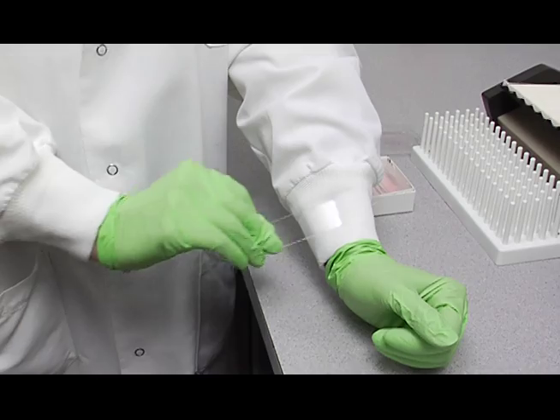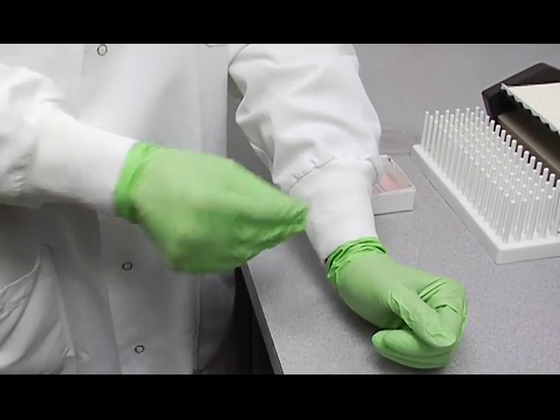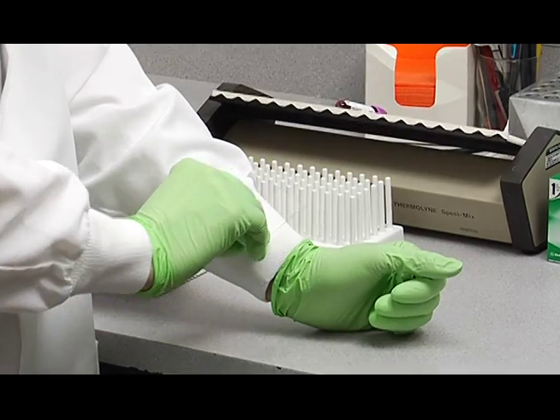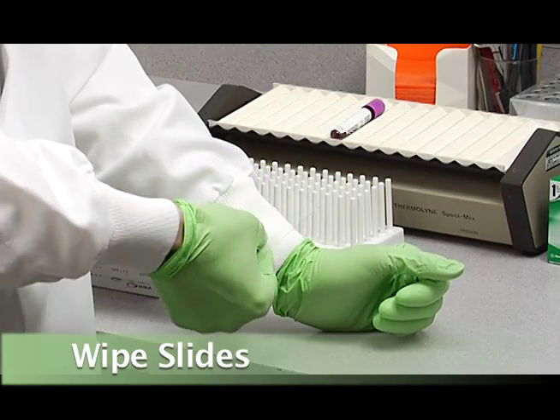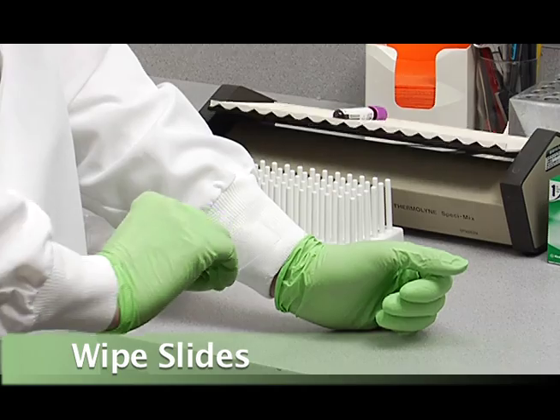First, you'll need to take your slides, and there's always a little bit of factory film on them from the washing process. You'll need to wipe that off on the cuff of your lab coat, just like this, both sides.